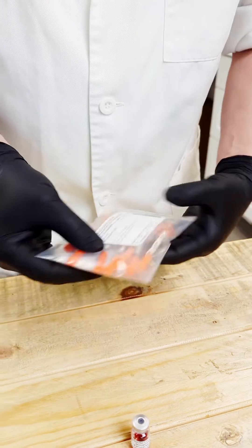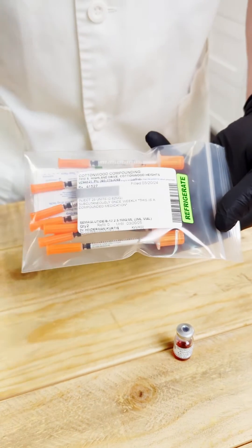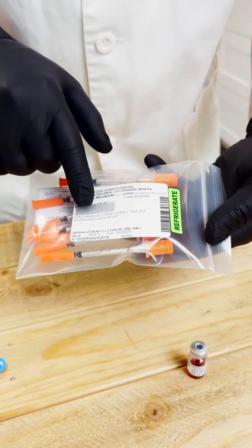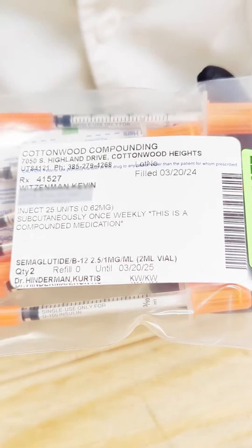So when you receive it in the mail, you'll receive it usually in a little bag like so. This one's just for me, so it's a dummy prescription. It'll always say the units first and then in parentheses it's going to say the milligrams strength.